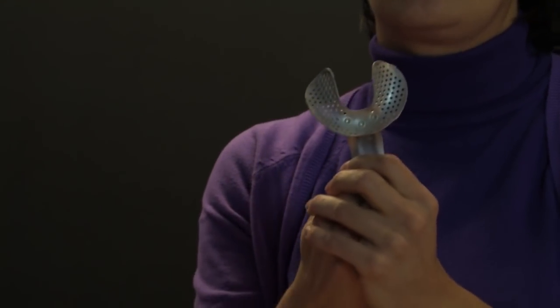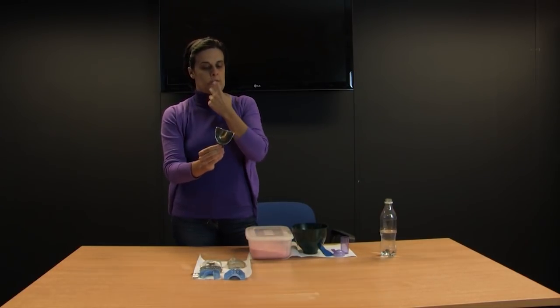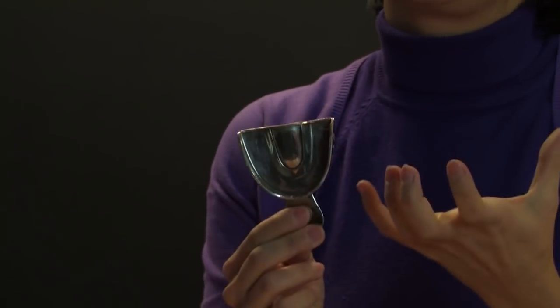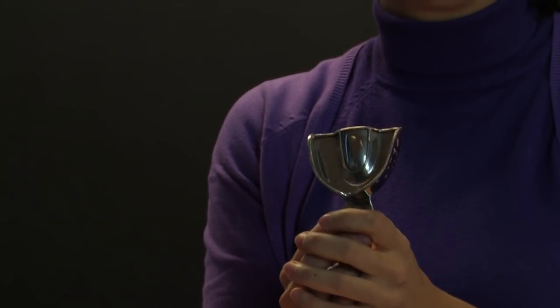This one is a lower metal edentulous impression tray. The next one is an upper metal dentate impression tray. As you can see, this one is not perforated but it has a wire which will help with retention — keeping the alginate in the impression tray once it's been taken out of the patient's mouth. For this kind of tray it might be useful to apply a tray adhesive before placing the impression material in the tray.